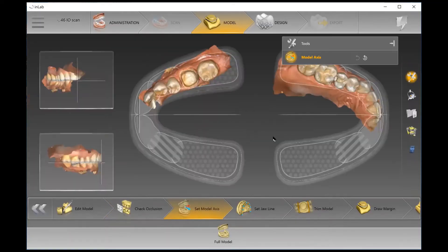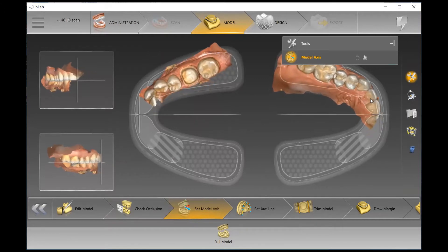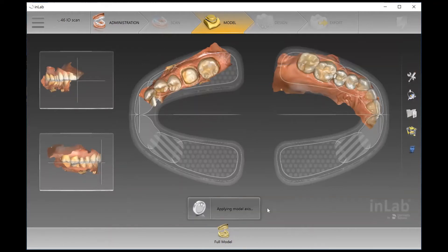In the Set Model Axis step, a couple of key things we're setting up: we're lining up our quadrants within the arches themselves — those arches representing the upper and lower jaw. I typically like to move my upper jaw as the stationary jaw, and then I line up things like my midline and occlusal plane accordingly.